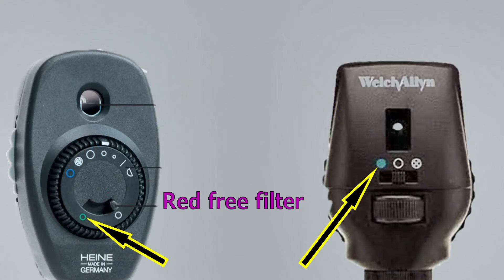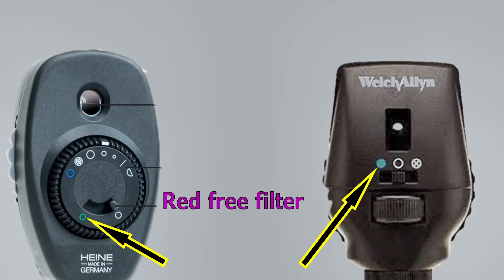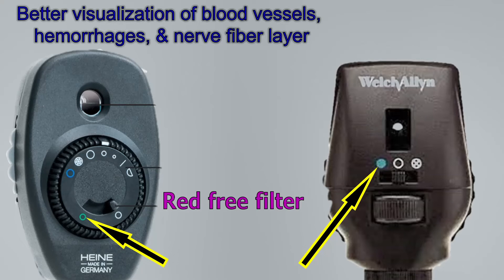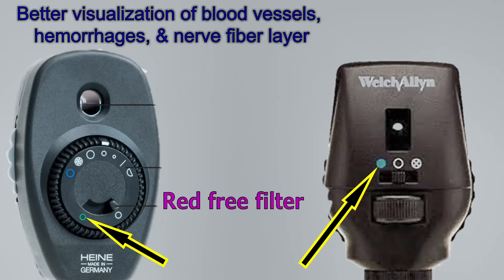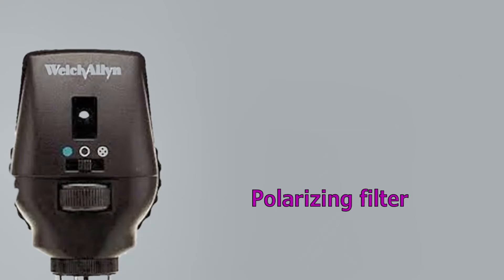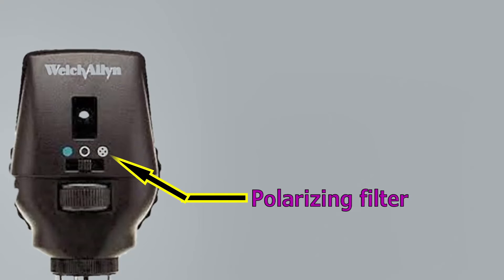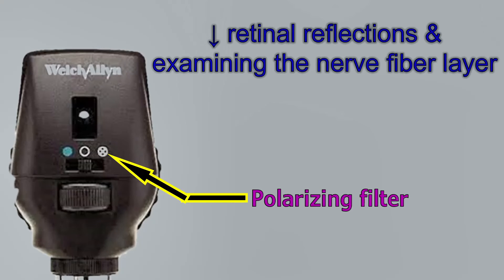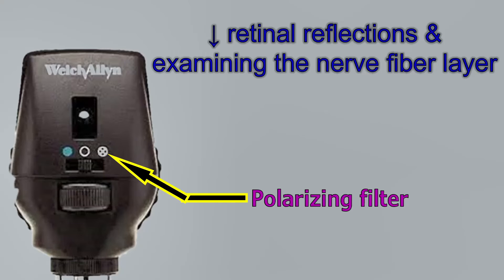All of these may be combined with a red-free filter to help in better visualization of blood vessels, hemorrhage, and the nerve fibre layer. Some ophthalmoscopes also have a polarizing filter to reduce retinal reflections and examine the nerve fibre layer.